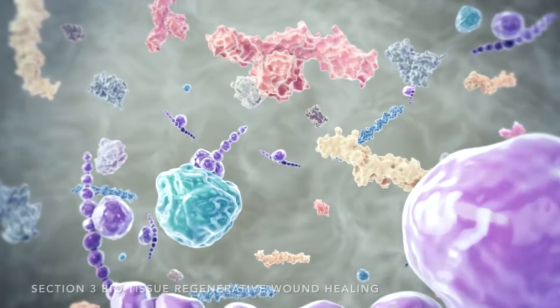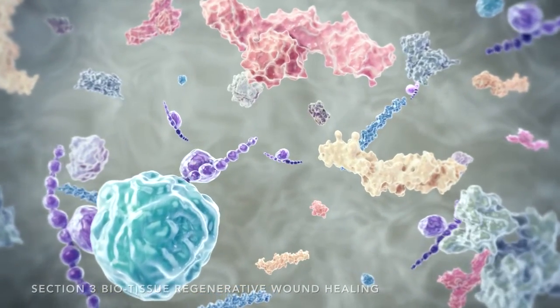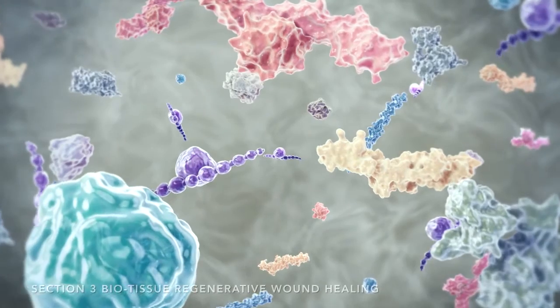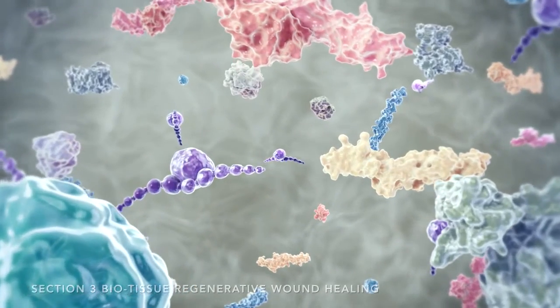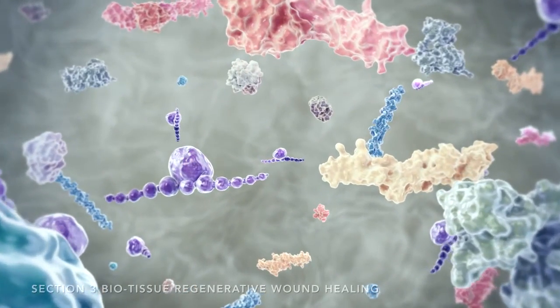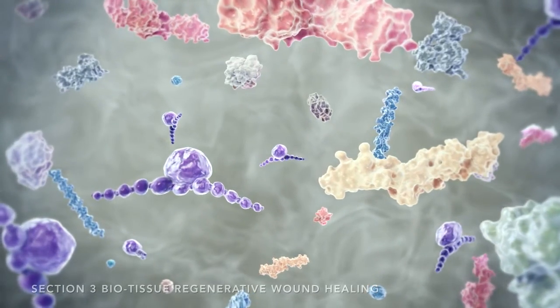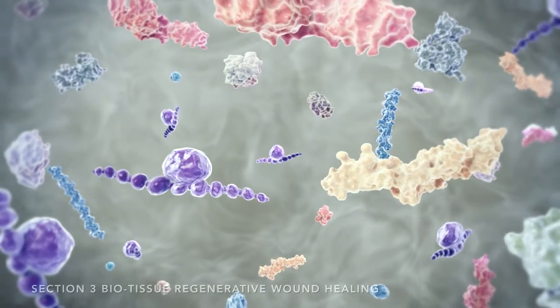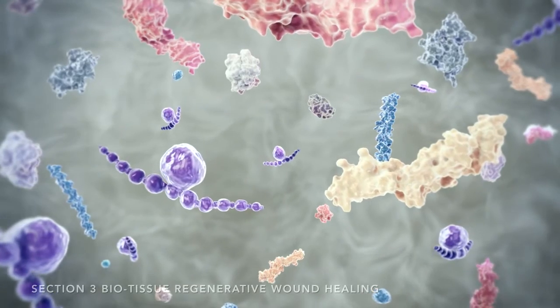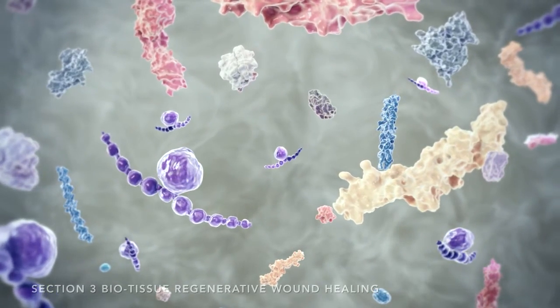In summary, only Biotissue's unique and proprietary Cryotech process abundantly provides the active, biological, extracellular matrix components, such as HCHA, that promote regenerative healing of the ocular surface. The result is a greater chance for normal tissue replacement, less scarring, and maintenance of an optically clear cornea.